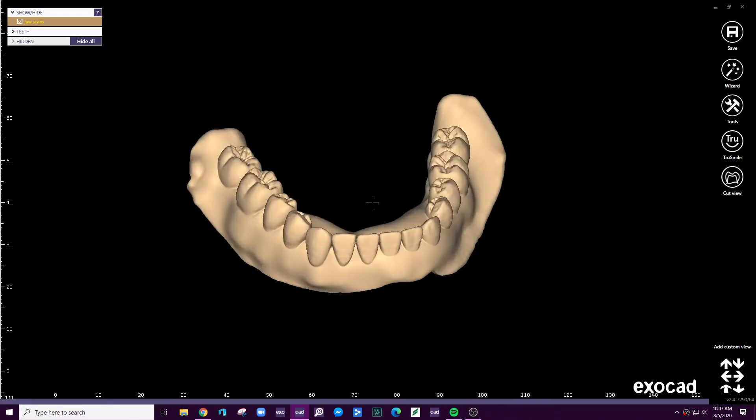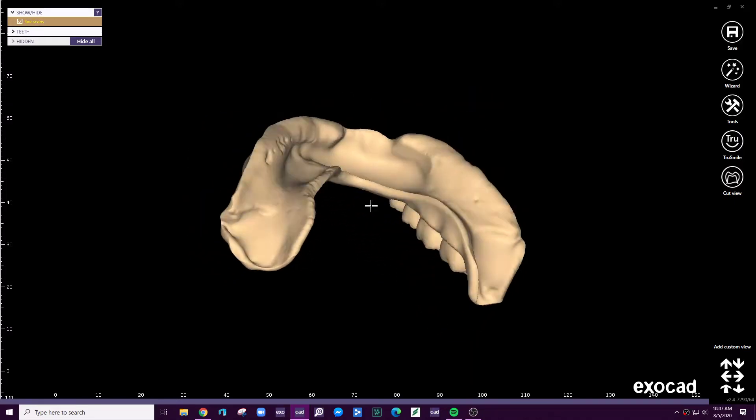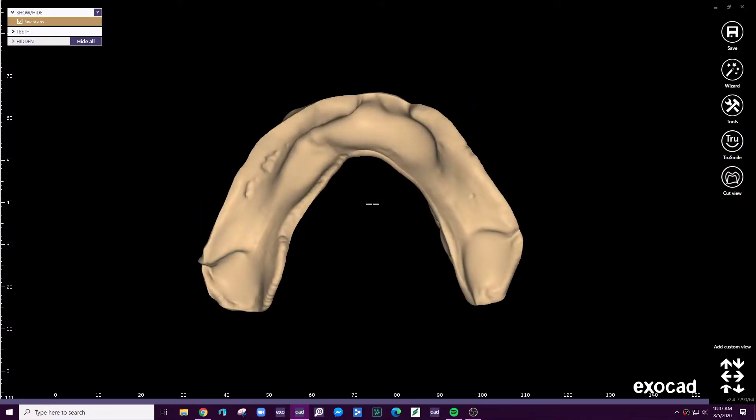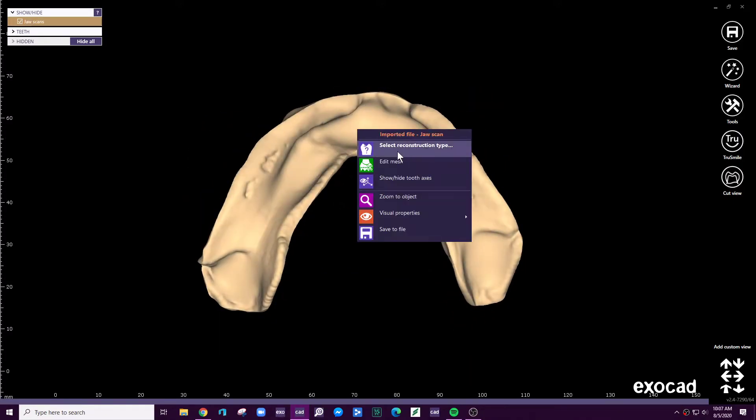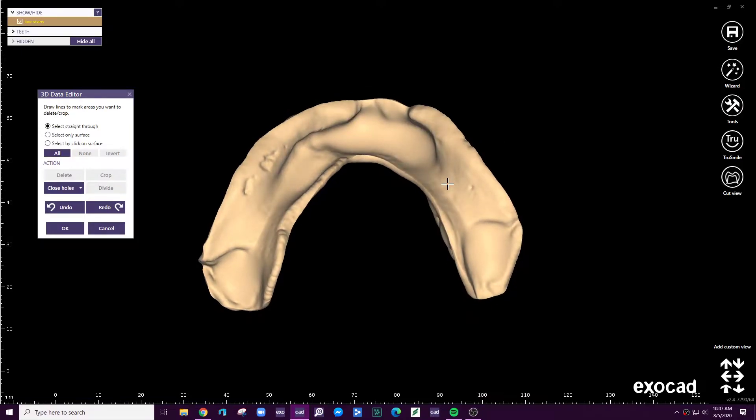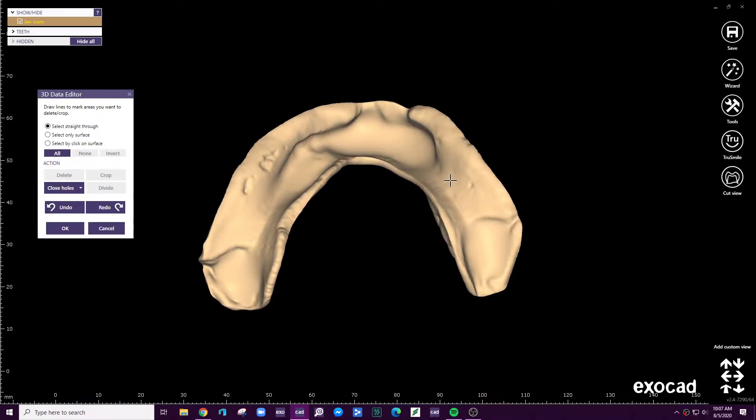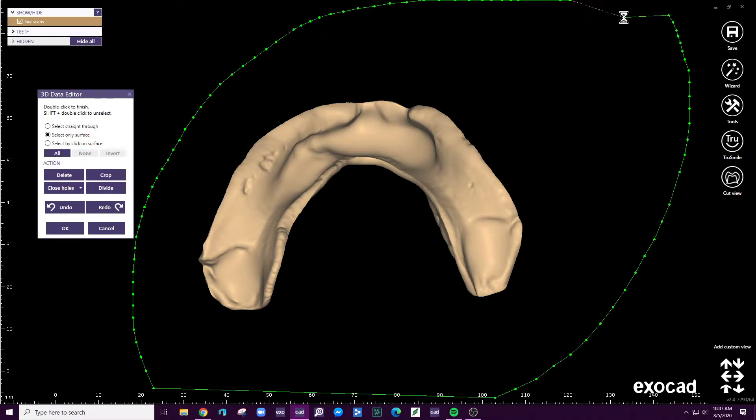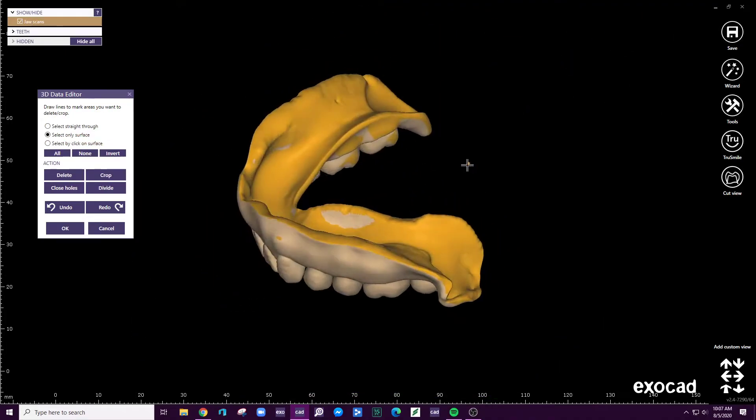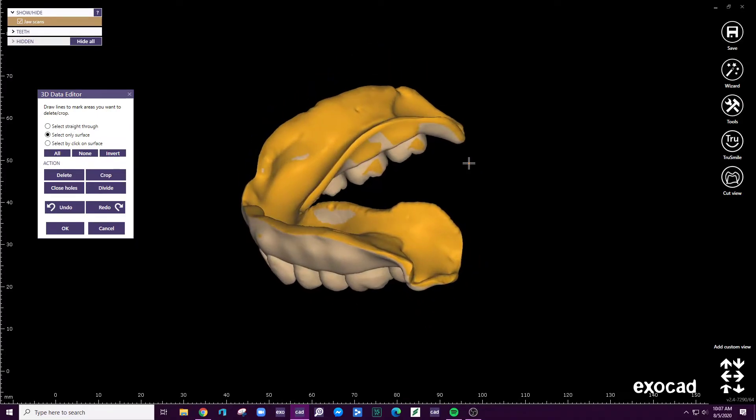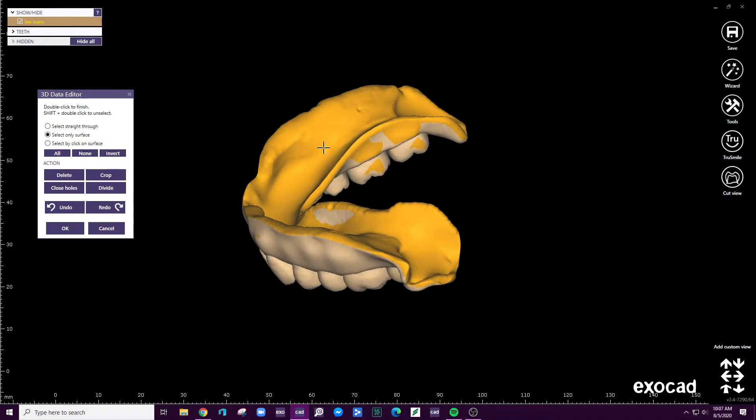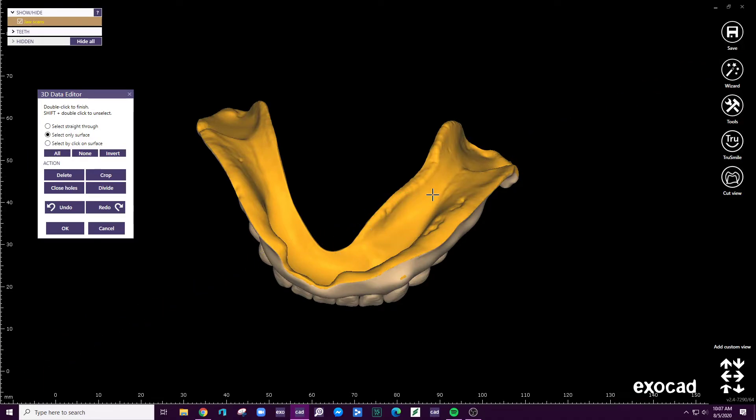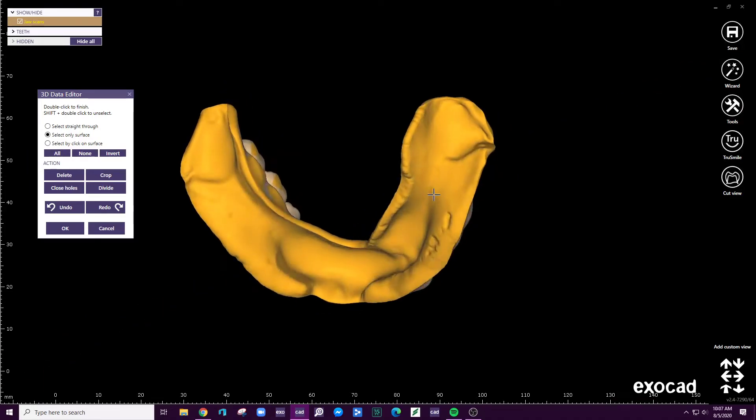And what we're going to do is just isolate this tissue surface. I'm going to come here to edit mesh. Make sure that the borders and the view is just like this. Go to select only surface. And what that'll do is that'll select everything that is visible, kind of outlining essentially the borders for us.